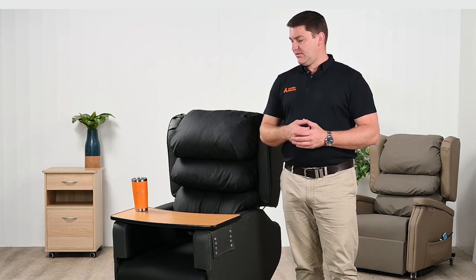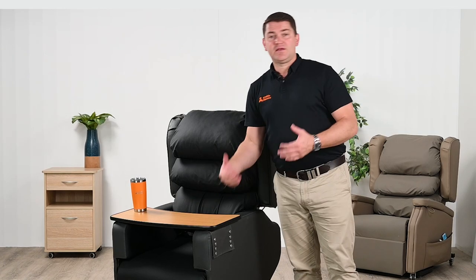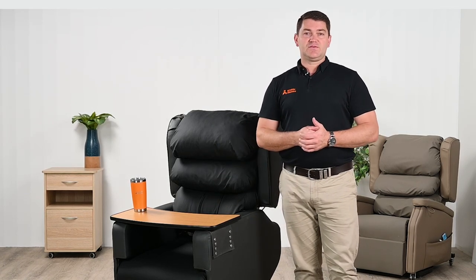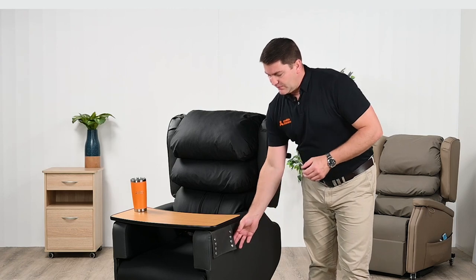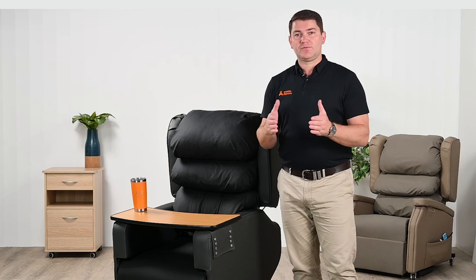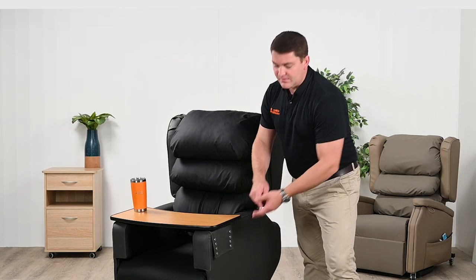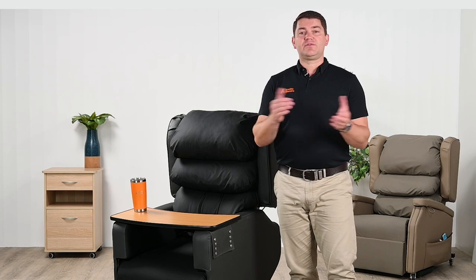One of the accessories we can get for the Configura Advance is the activity table. For someone who might want to be performing activities, eat and drink in the chair, that is where we can use the activity table. When we come to adjust the width of the chair, the arms slide out to accommodate different seat widths, and what we've got here on the side are the buttons to allow for that adjustment.